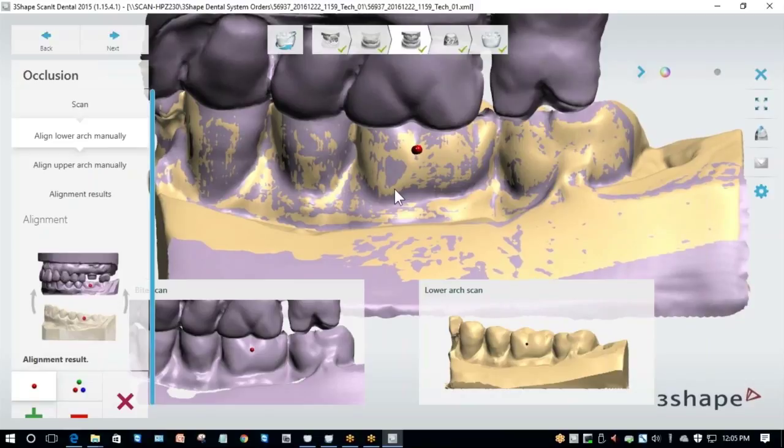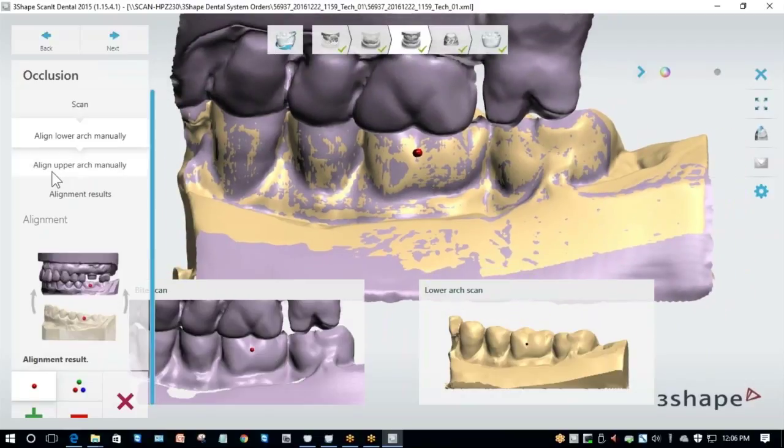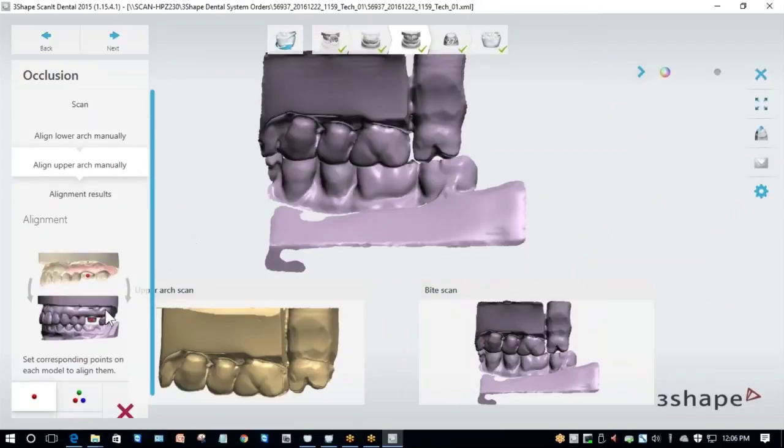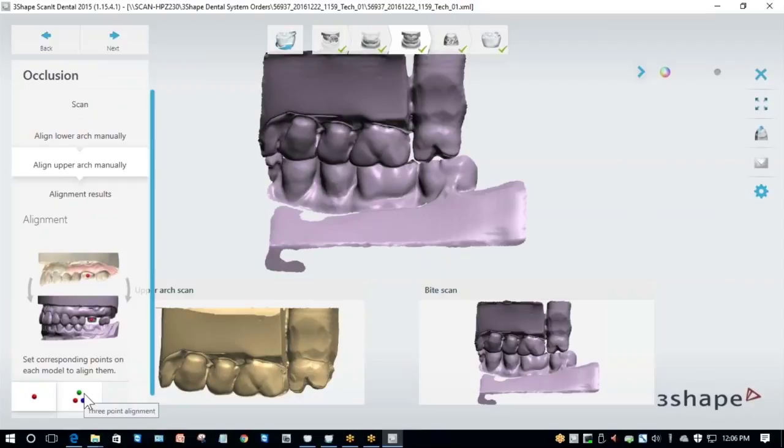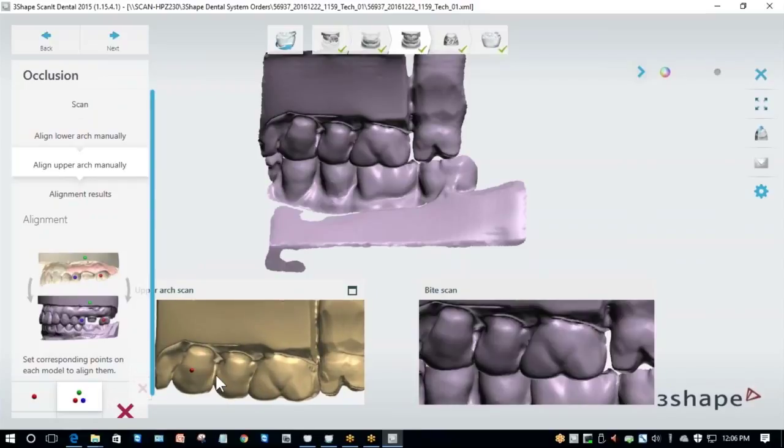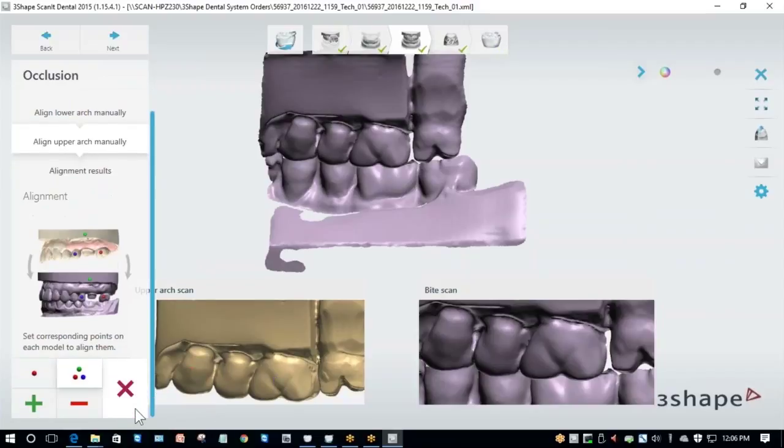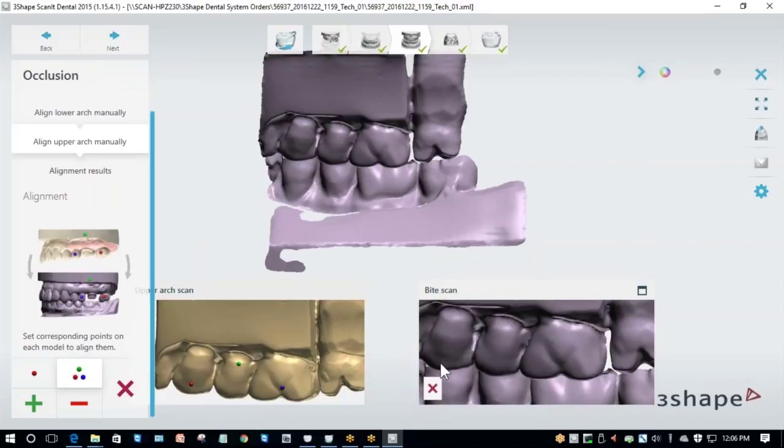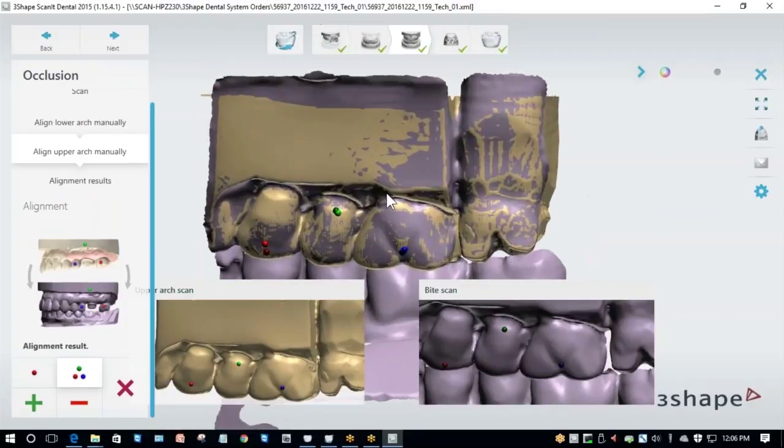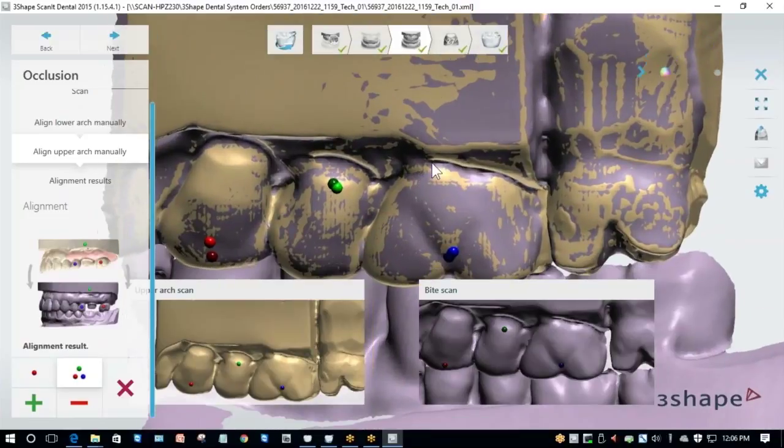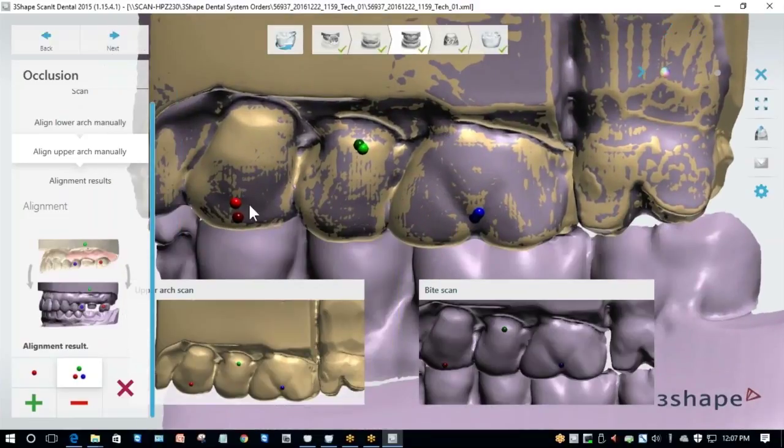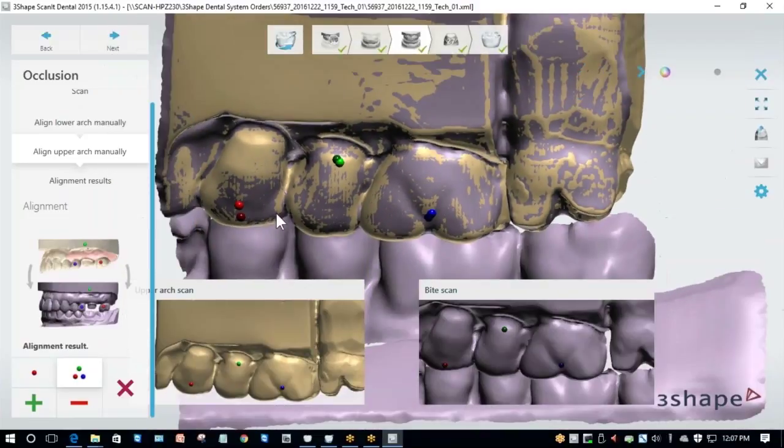Now I'm going to click on align upper arch manually. To align this one, I'm going to use three point alignment. First I select the three point alignment option, then I need to place the points on each model. Once again, I need to place points on the tan model and on the purple model and make sure these points match. It's also important to note that if I'm doing a three point alignment, I need to have them in a triangular pattern. You do not want to put your three points in a straight line. Instead, you want to have one high and two low or two high and one low. Now that I've done that, I'm going to find the corresponding three spots and click them in the same order. And here you can see I have an accurate alignment. It's okay if my dots do not touch each other as long as I have a camouflage pattern.